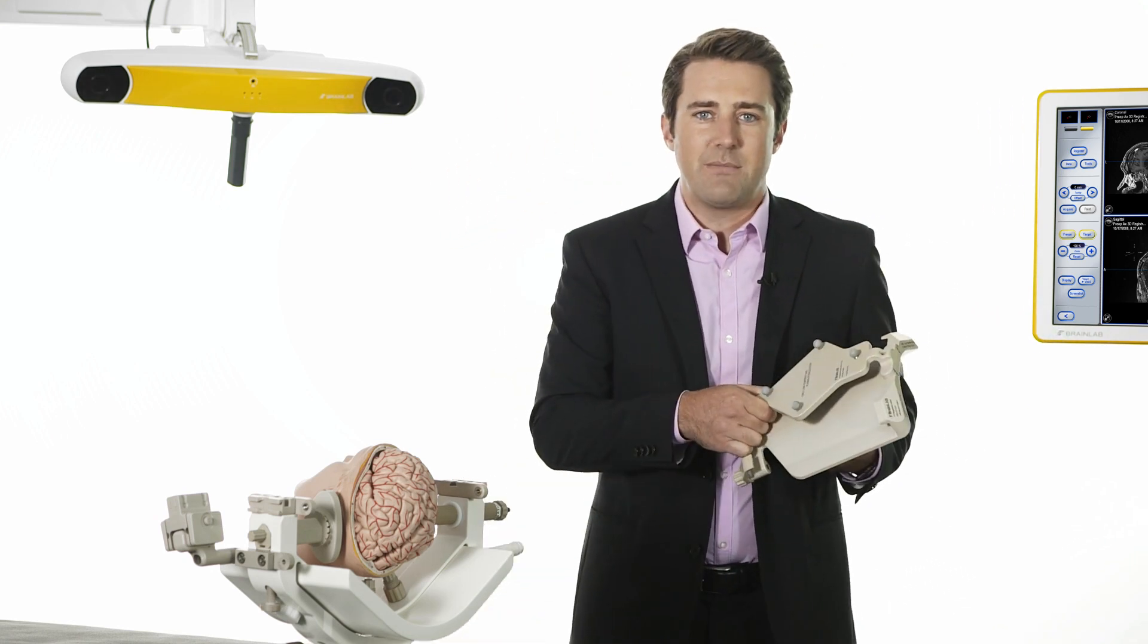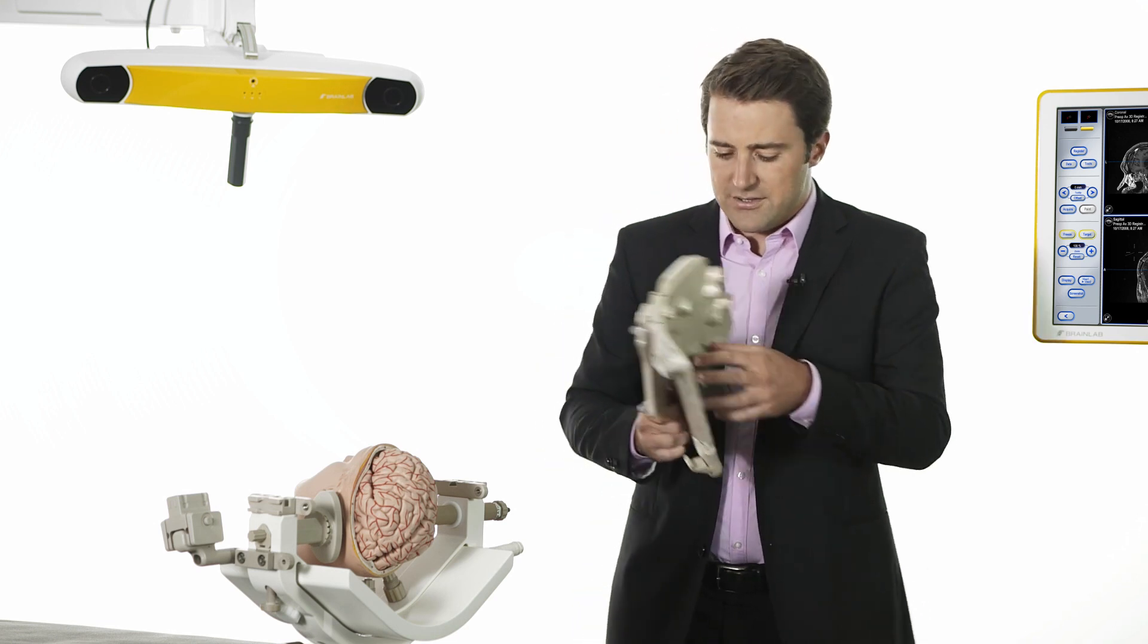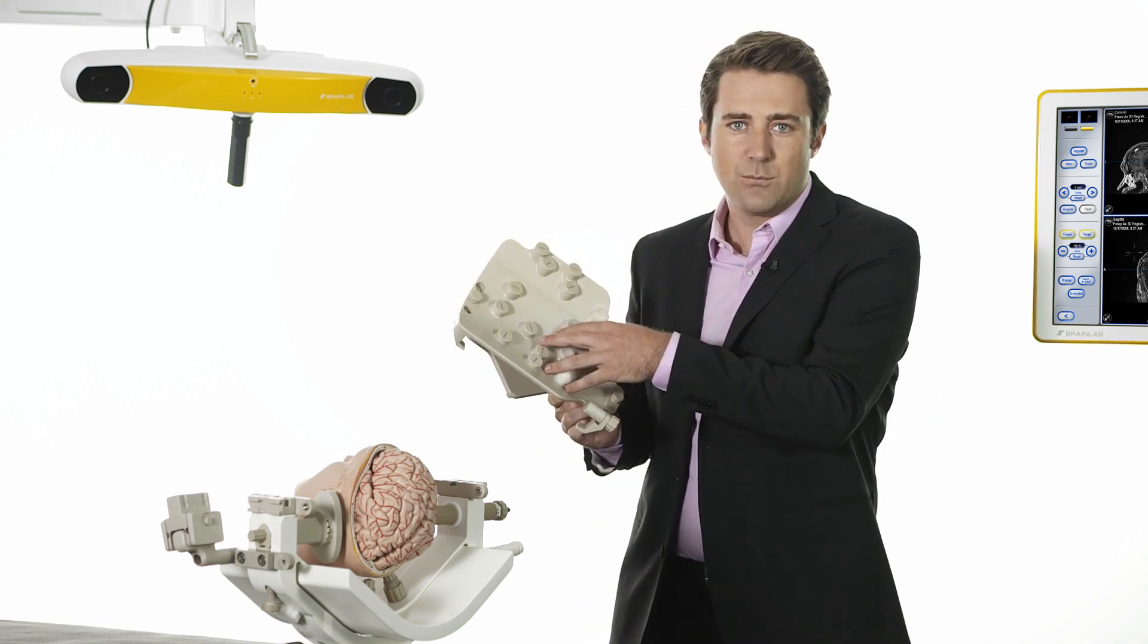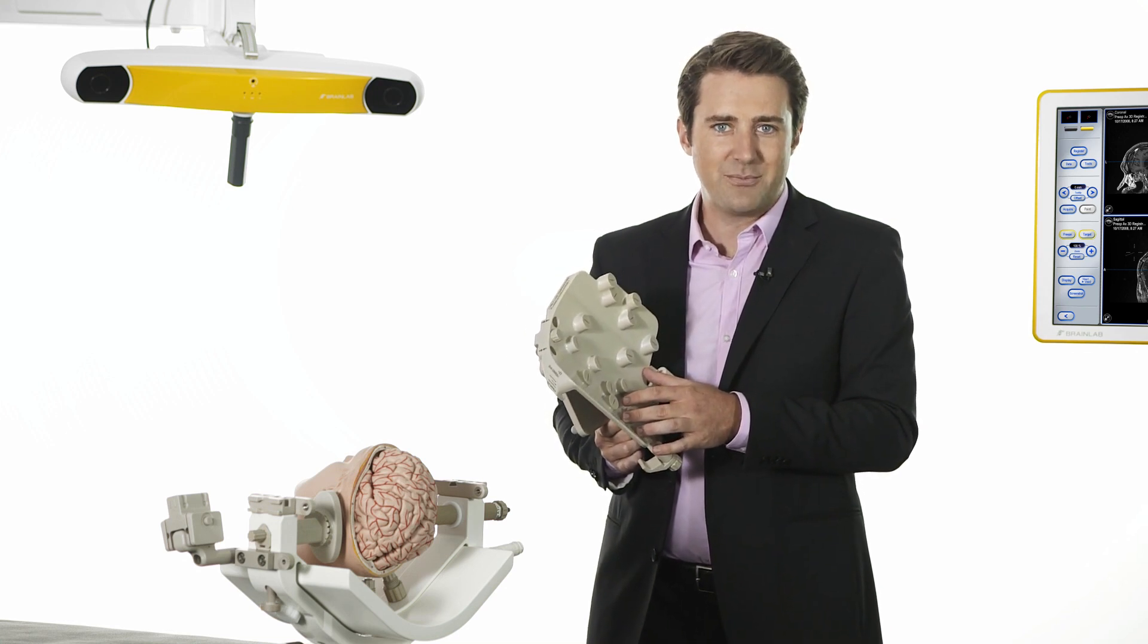This is the registration matrix for use with Siemens and Philips MR scanners. The bottom contains MR marker spheres that will be visible in the acquired MR images and build the basis for the automatic registration.